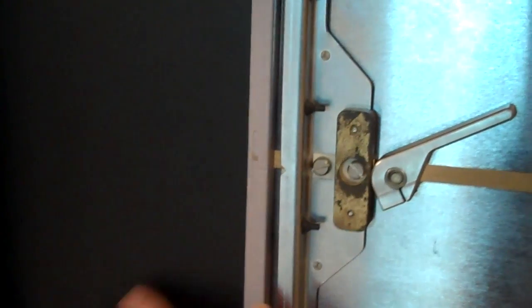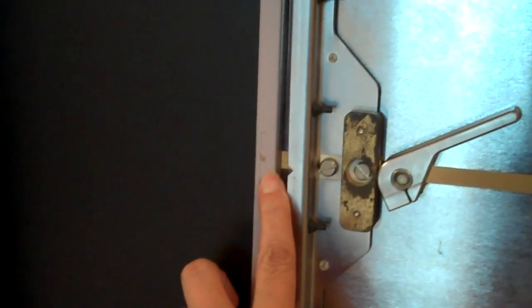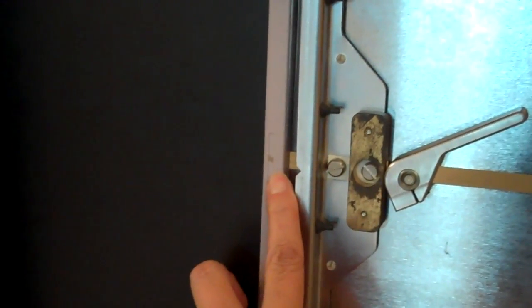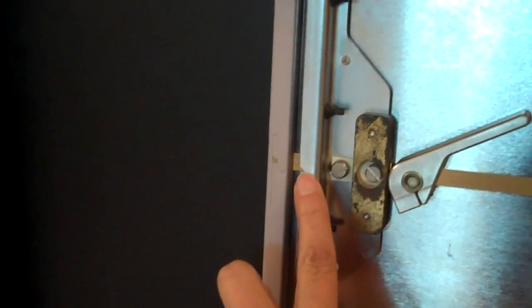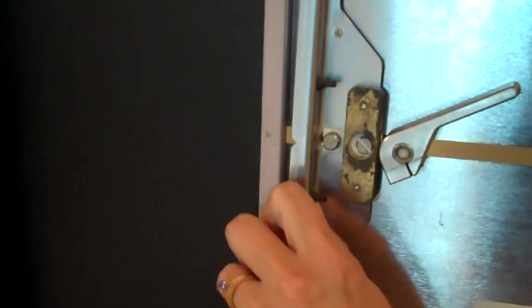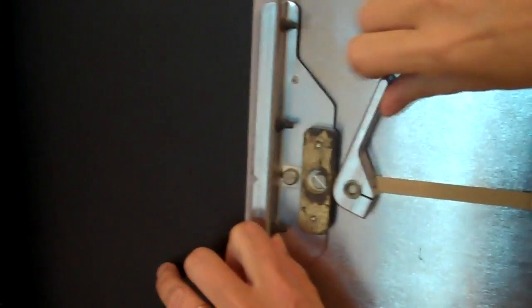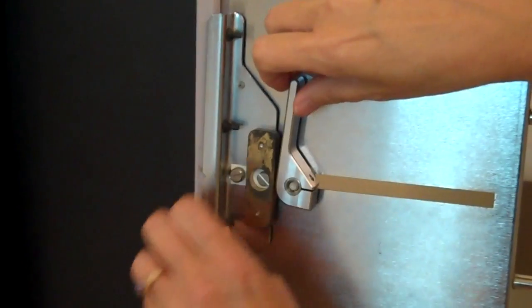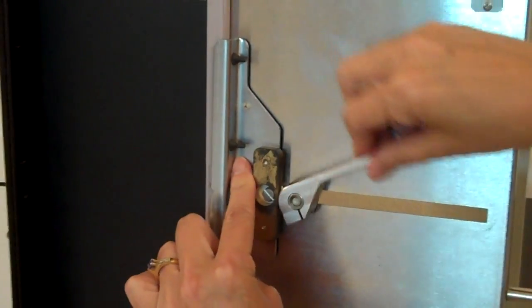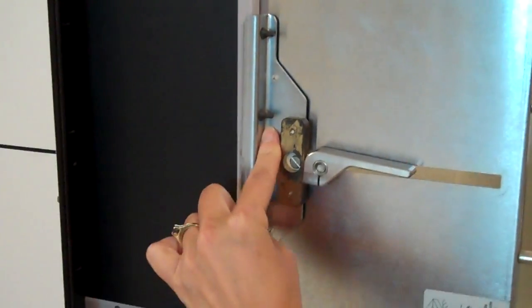And now I have alignment between the middle of the image receptor and the middle of the image tray. Push and lock.